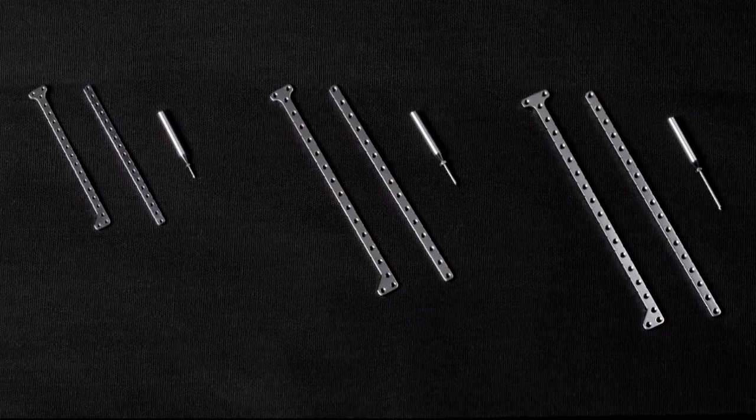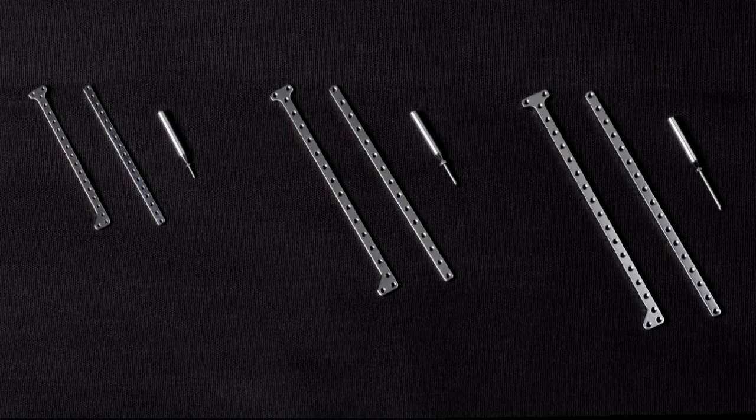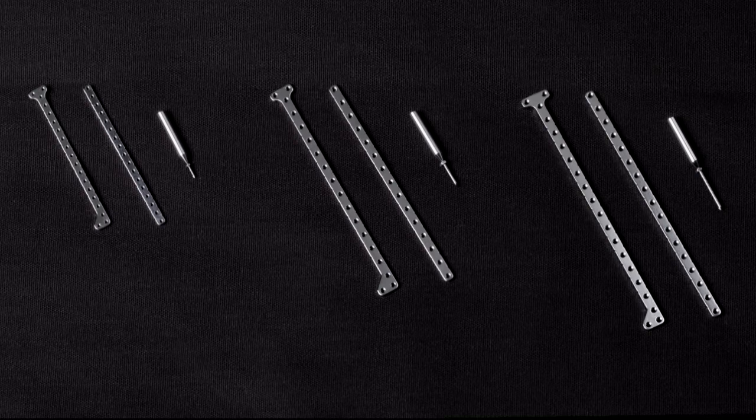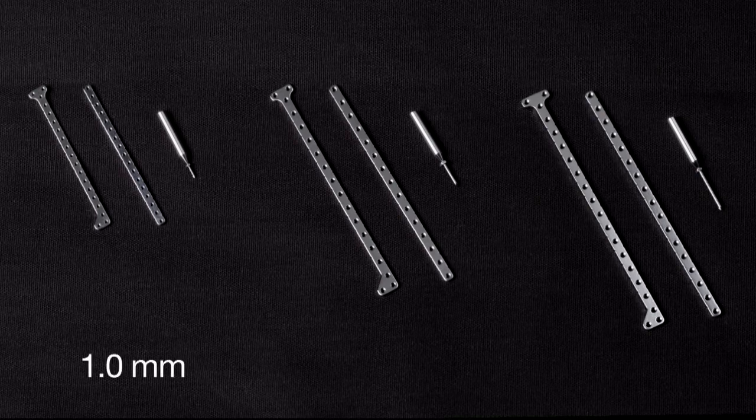Let us move on to the VetKISS plates and screws. Screws and corresponding plates are available in three sizes based on bone screw thread diameter: 1.0, 1.4, and 1.6 millimeter.